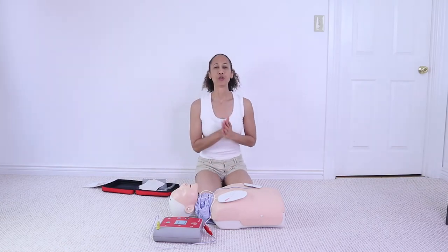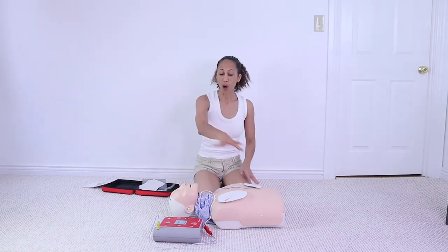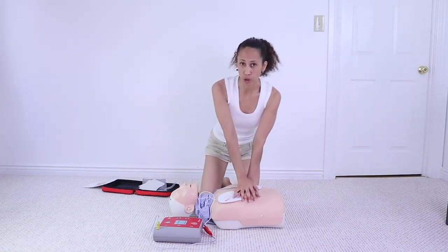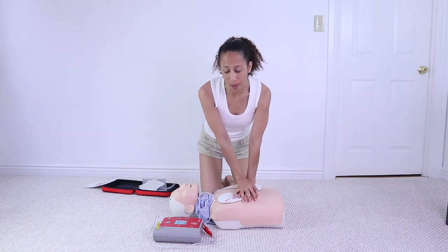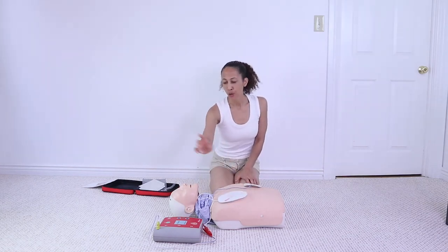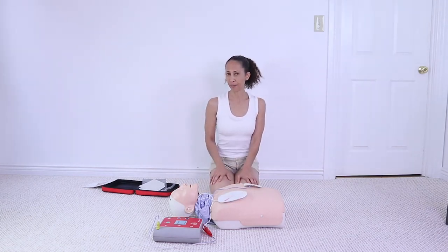If there's a bystander while doing all of this, you start CPR — don't wait. Once the pads are in place, turn the AED on.